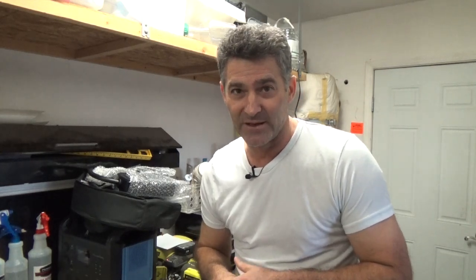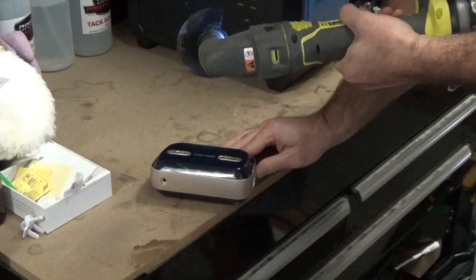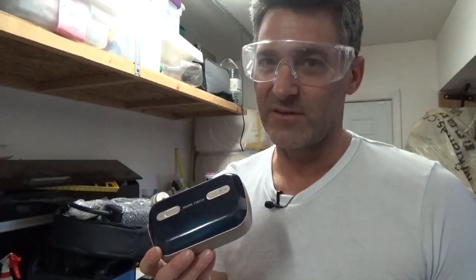We're going to cut this thing open and see what's inside, and we'll be doing so under the ever watchful eye of Lego man. You can see there, I have just a bit of a Ryobi fetish. Pretty much if it runs on batteries or can recharge, makes Papa happy. Now, that kind of looks like a Duplo. You got to love Lego humor.